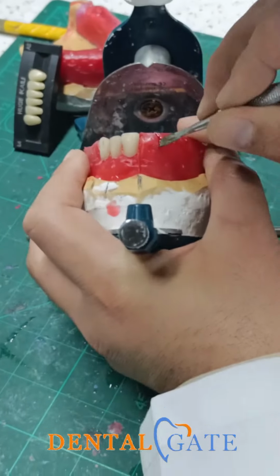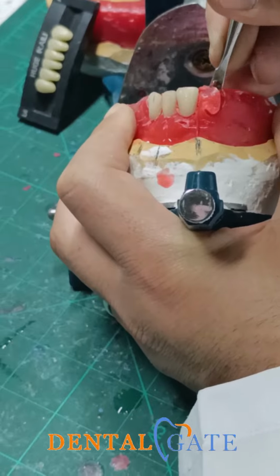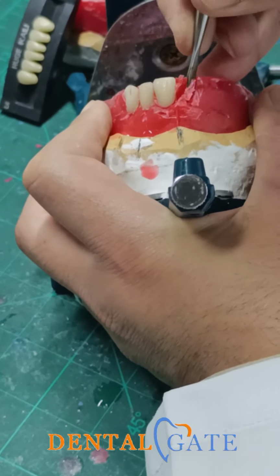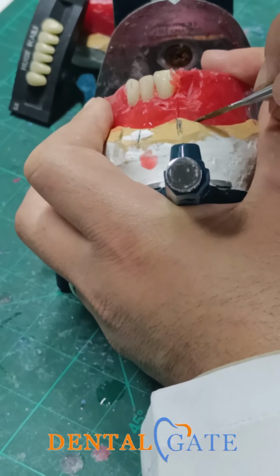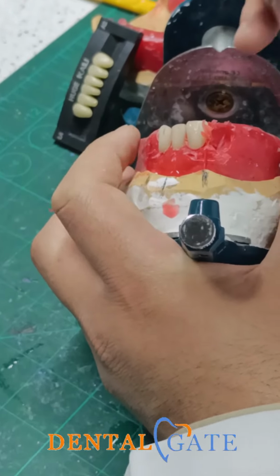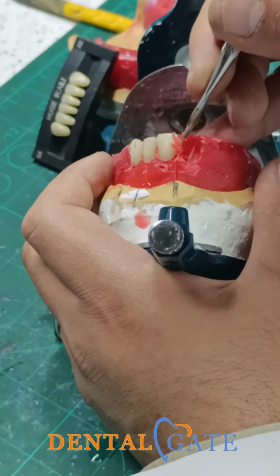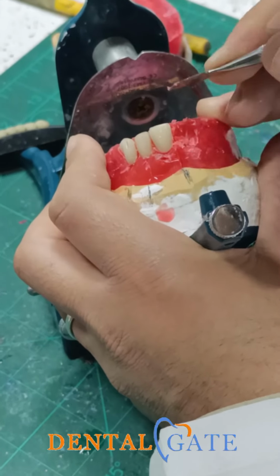And make the central incisor with the same criteria. Remove a sufficient amount of the wax. Be sure the record base does not have any elevation, because we had 22 millimeters. This is a sufficient amount. We don't have a patient now. There are no problems, no issue with the arrangement, because this is for practical lab.